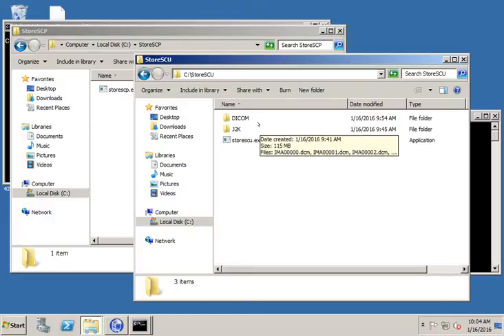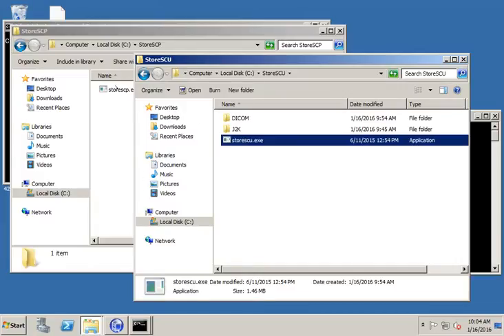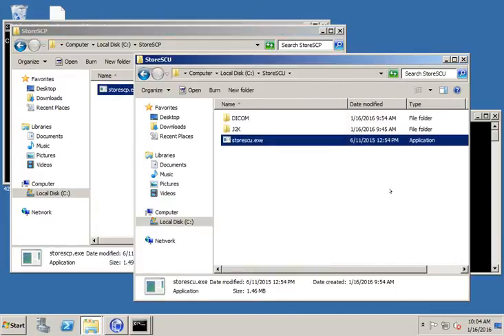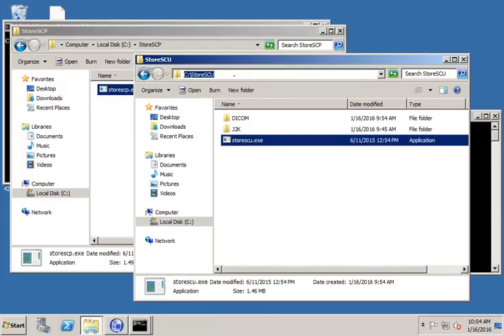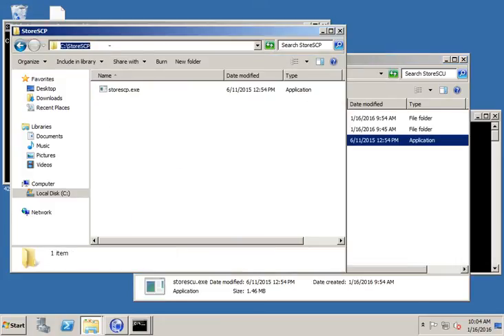When you download it, you'll get a rather large bin directory. So what I do is I extract the two tools that I need. In this case, I extracted StoreSCU and I put it in a directory called StoreSCU on my Windows machine, and same with StoreSCP. I just created a directory called StoreSCP on my Windows machine.